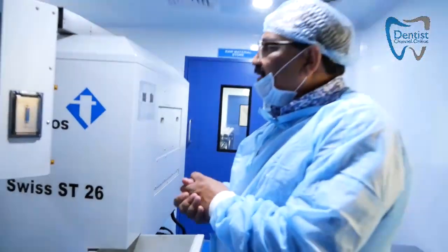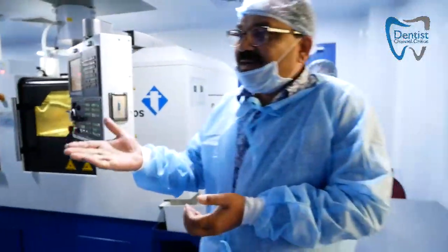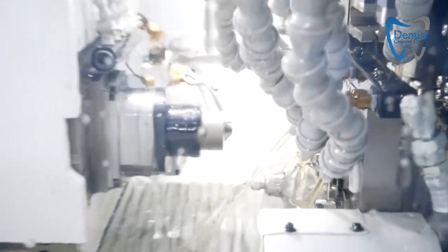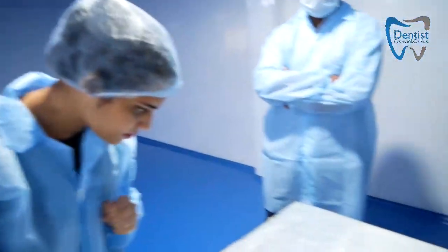This is an automated machine. We also have a Japanese machine — you can see it is more clear here. You can see the components being produced from the right side — these are the components that are produced.